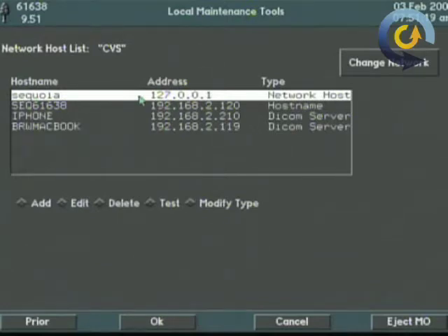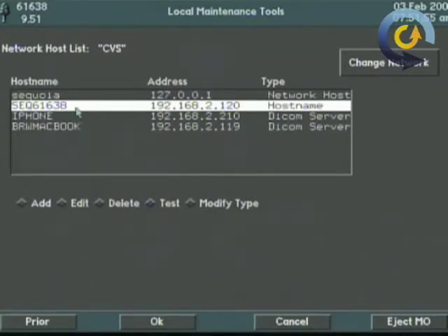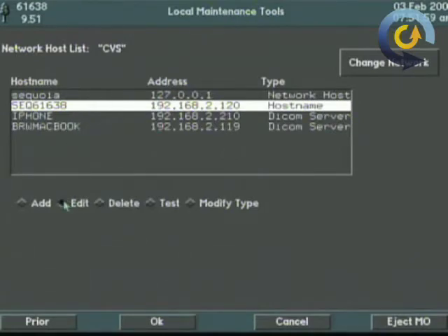Two of them are always there, that's the top two. The Sequoia, which is an internal address. Can't touch, can't mess with, leave it alone. Second one is the IP address for the Sequoia itself. That's its IP address to the outside world. That information will be given to you by the IT department.